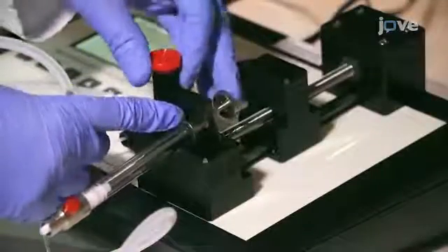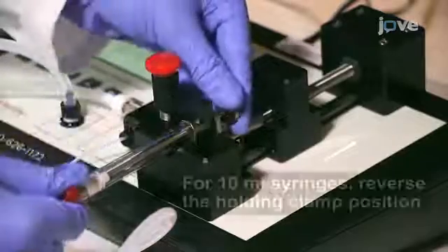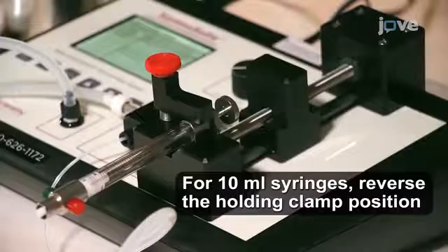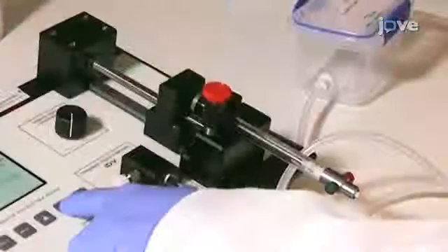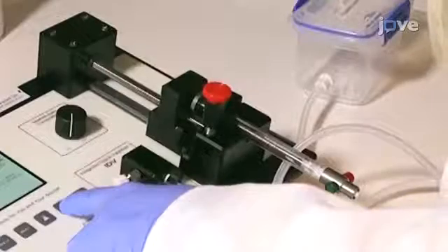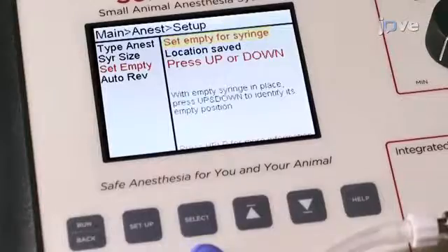Now, secure the empty, fully depressed glass syringe in the syringe retention block. Place the syringe so that the holding clamp is seated on the metal collar of the syringe. Adjust the pusher block so that it makes light contact with the top of the syringe plunger. Save the empty position.